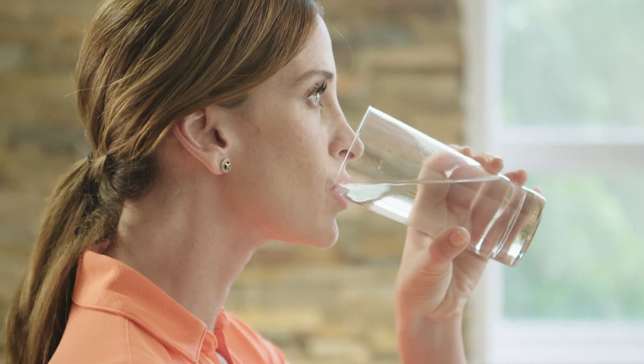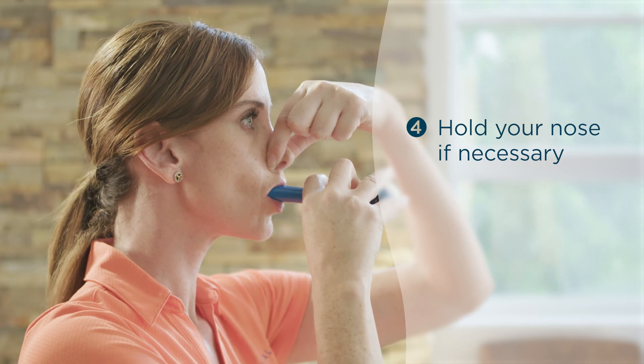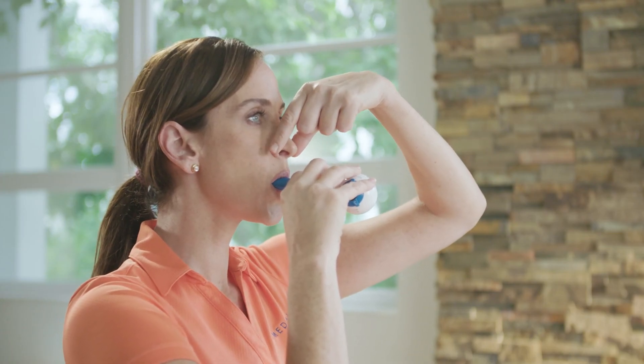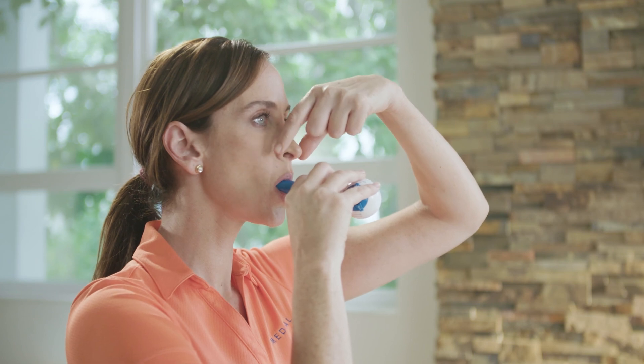It's important that you don't let air escape through your nose during training. If this is difficult for you, you may initially need to hold your nose with your fingers to get the feel of the proper airflow through your mouth. Nose clips may also be used, but some find it causes an uncomfortable sensation in the ear canals. You may want to take a few breaths holding the nose closed, then a few without, then a few with, until you get it.